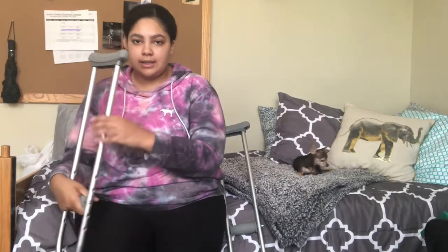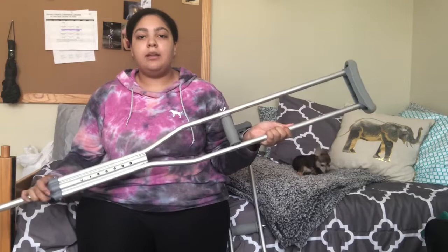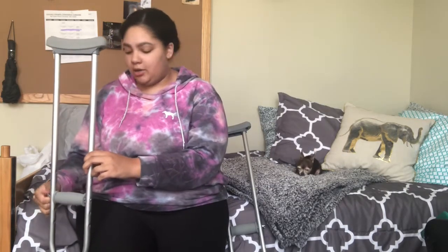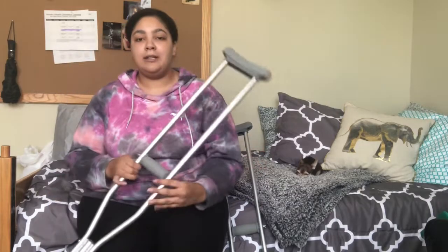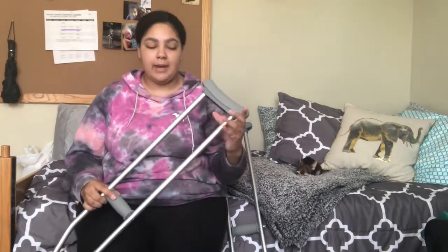There are really only two moving pieces — it's not that complicated. Usually when you break your leg, your doctor or a nurse will set this up for you. Mine was set up in the ER so I haven't had to change it. The only time I need to change the height is when I'm in a small car and need to fit the crutches in the trunk or back seat.